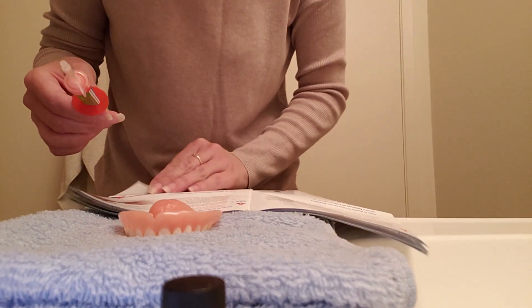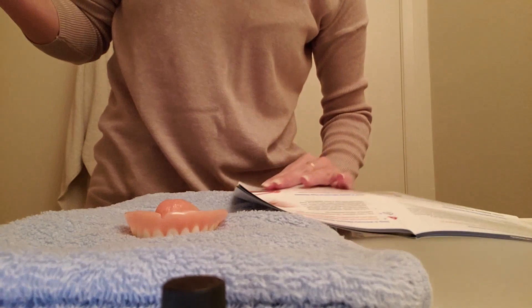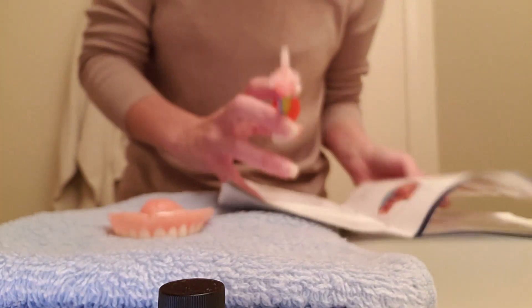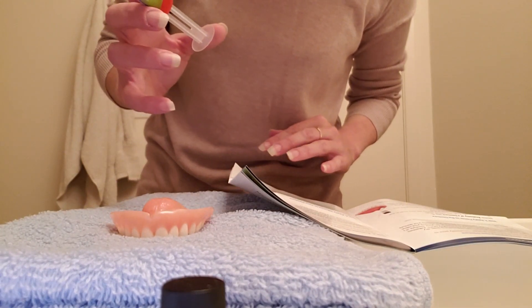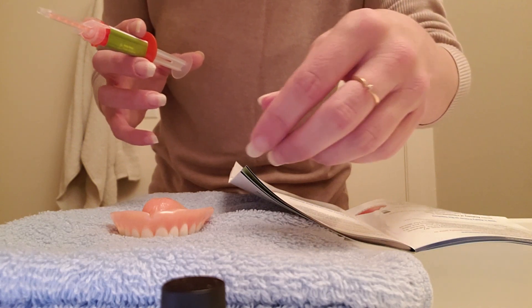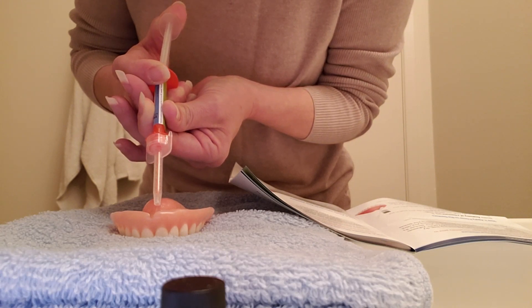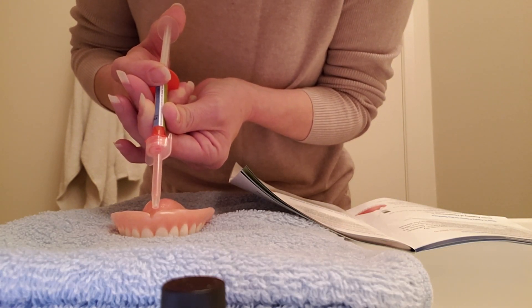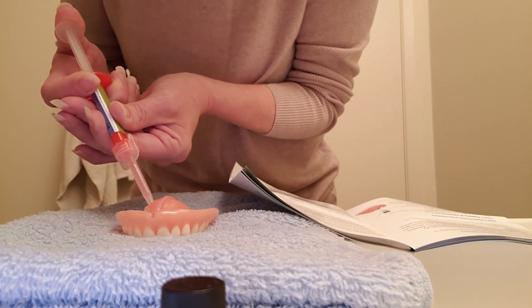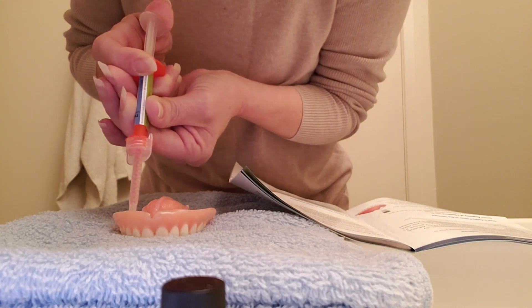Okay, that must be right. Apply silicone to your denture — as you can see, that's what they're doing. The lines do not have to be neat and perfect. Apply three lines of silicone to the palette and the remainder in the trough. So — one, two, three — and then the remainder in the trough.